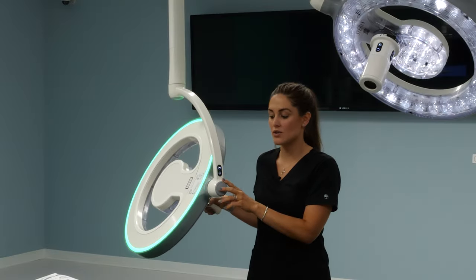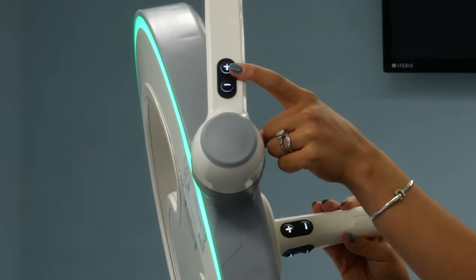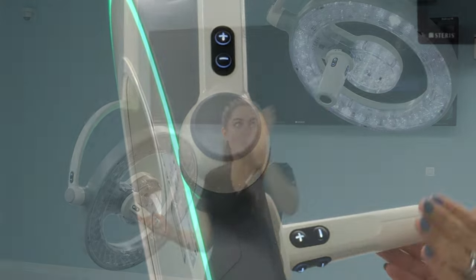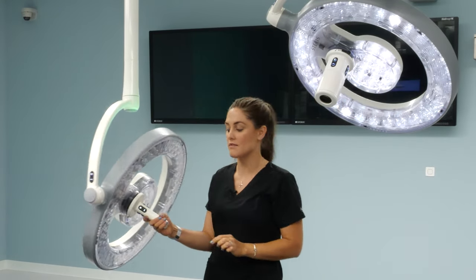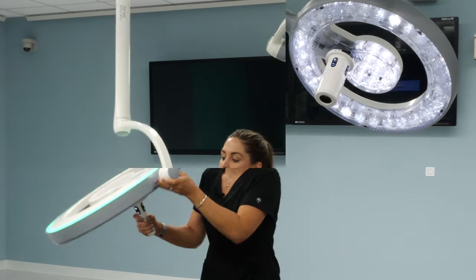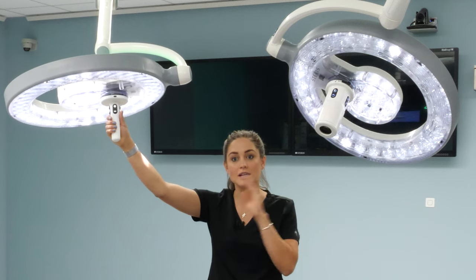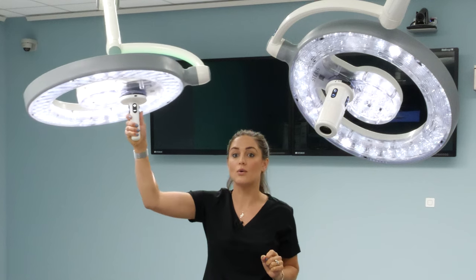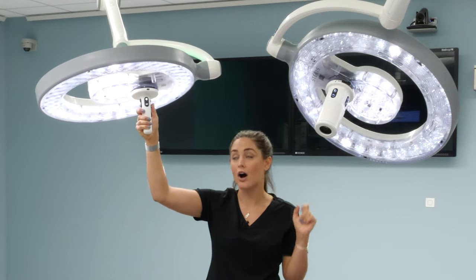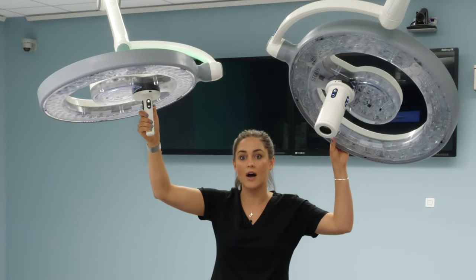The additional ways to control the light are from the non-sterile control located on the cardanic of each light, or the sterile control on the handle or the in-light camera. All buttons are identical and do all of the same things. If you hold the positive sign down it'll turn the light on. The intensity is operated independently from each light in the sterile field. In order to control the lights together on and off, you can hold down the negative — keep holding — and it shuts your second light head off.